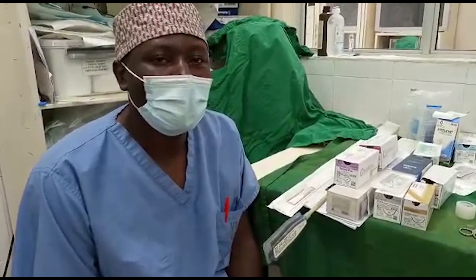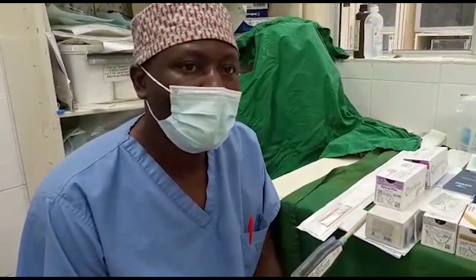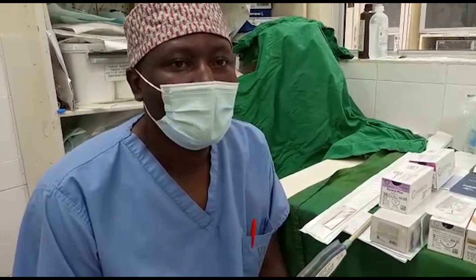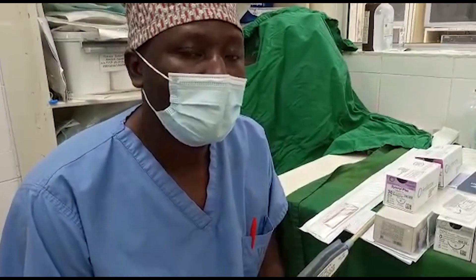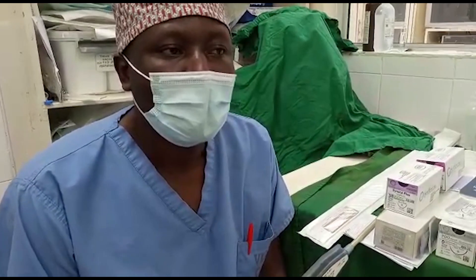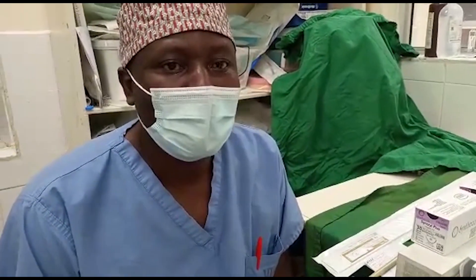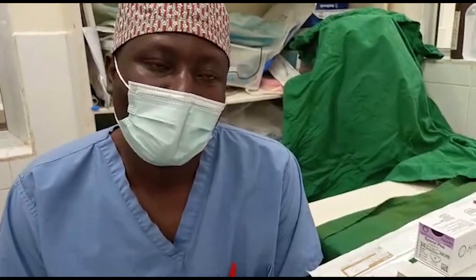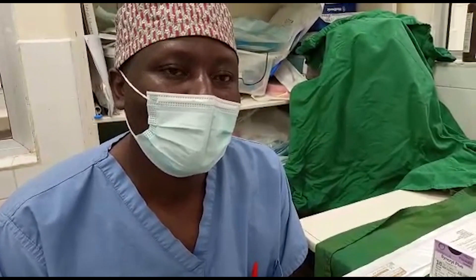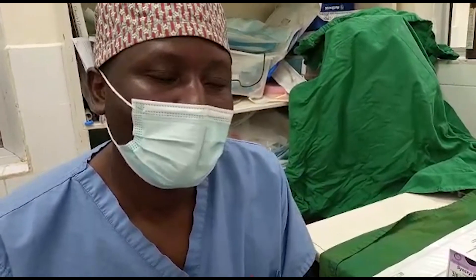Welcome back to my YouTube channel. Today you are going to learn about sutures. We'll start by definition, then proceed to the classification of sutures and learn about where we use them. A suture is a surgical device that is used to close a surgical wound or a wound that has been caused by accident.